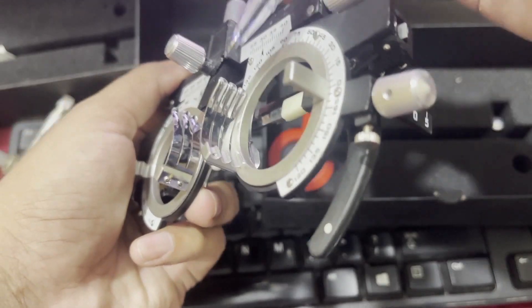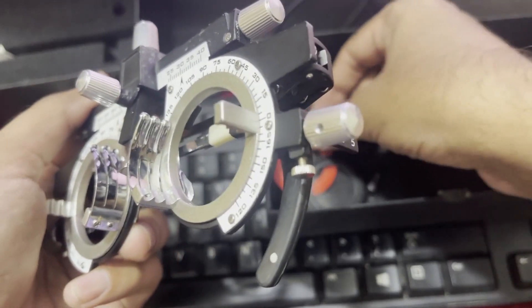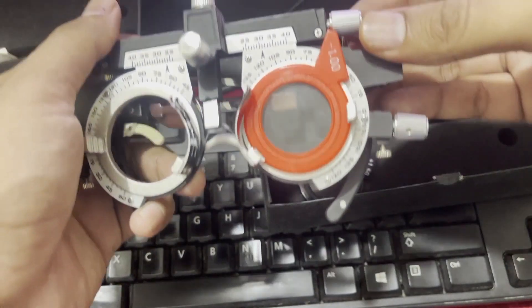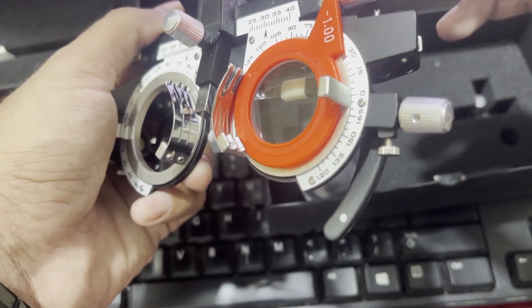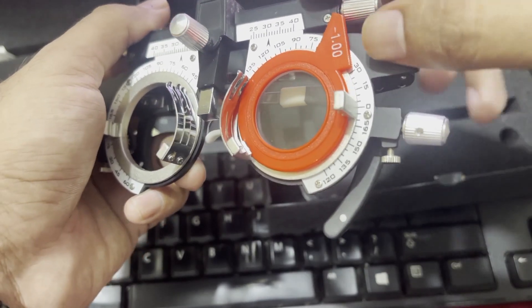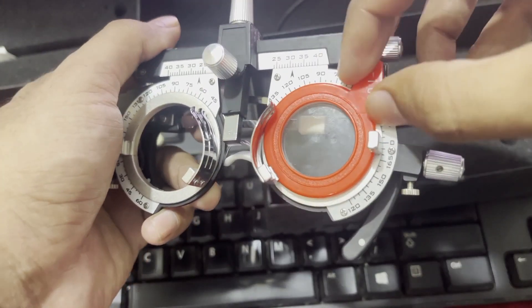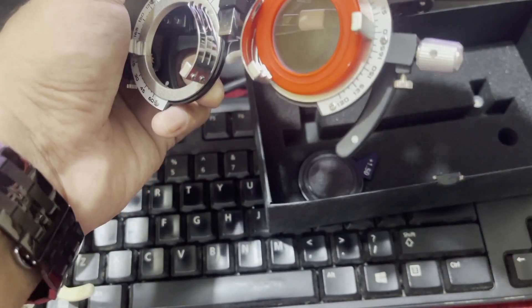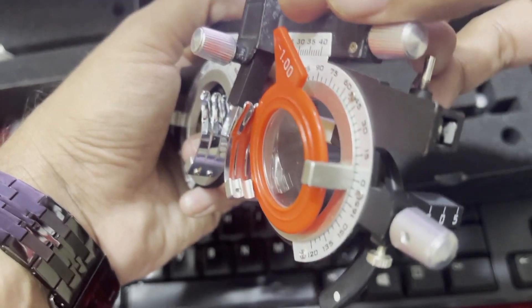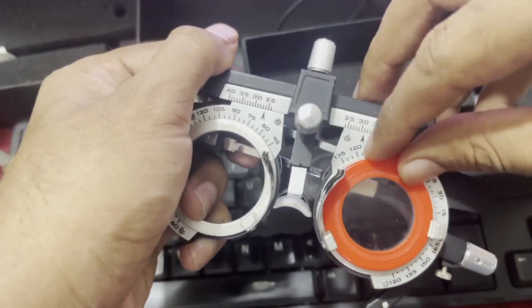The second compartment can be used for spherical lenses. If we have a low powered spherical lens — like myopia of minus one — we can adjust it in the first compartment when no high powered lens is needed. But if we do have a high powered lens, we place the high powered lens in the first compartment and the spherical lens in the second compartment.